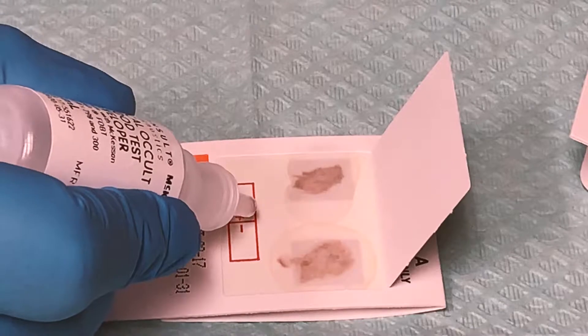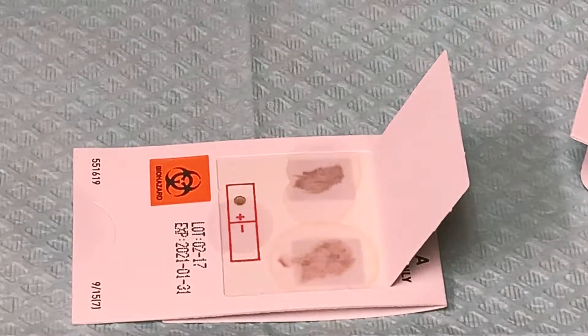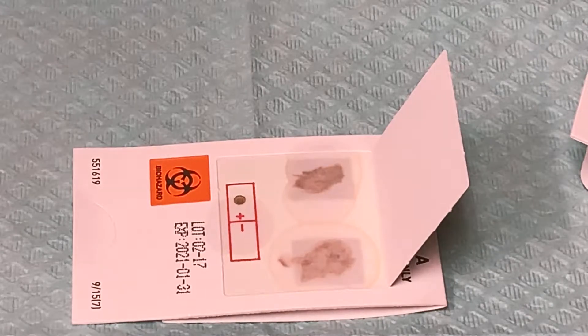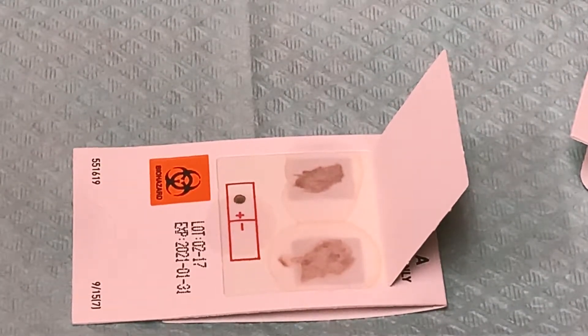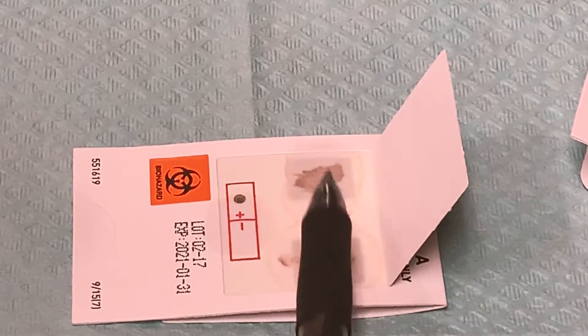Then we place one to two drops between the monitor boxes — right between that positive and negative sign, we put a couple of drops there as well. Then we wait one to two minutes and read the results.